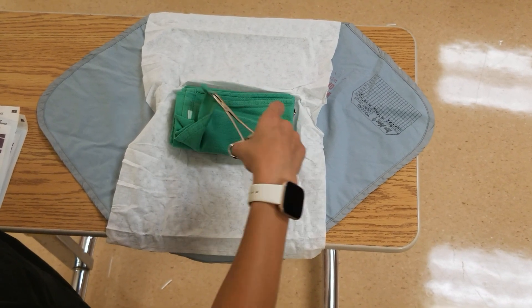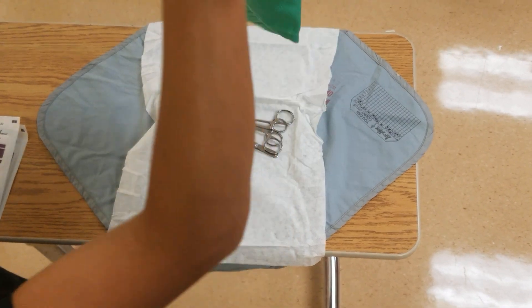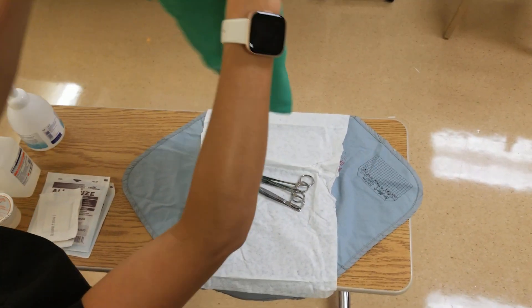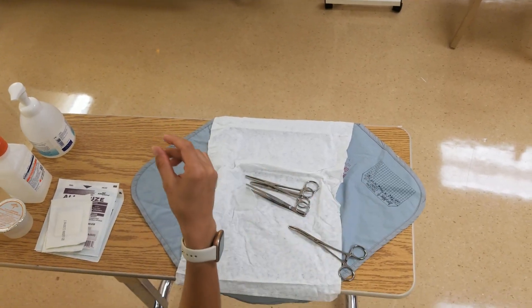At the top it's always packed with a sterile green towel and scissor forceps that lock. These are good to play around with beforehand because you can actually lock them — they're a lot more sturdy. This is the same as your disposable sterile drape; you may need it for your dressing change, or you may find you don't and can just put it aside.